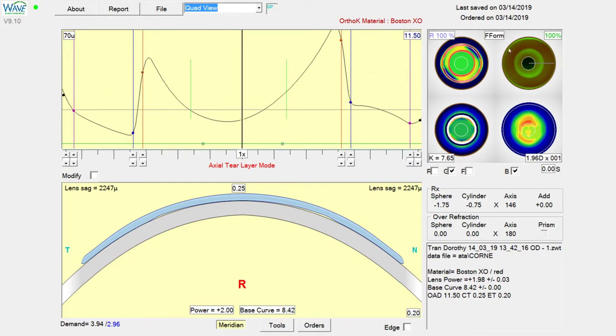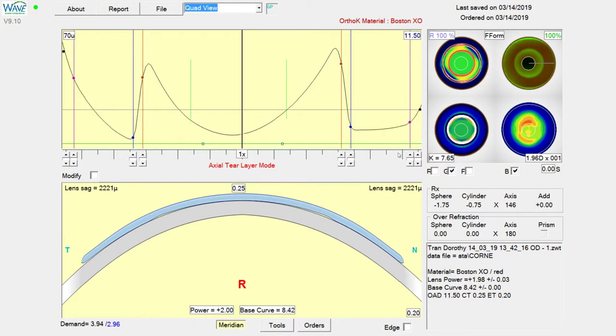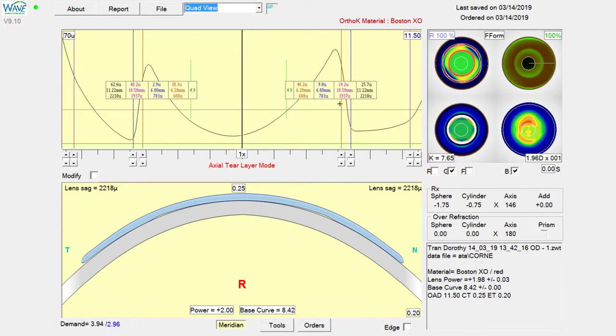We're going to do this all the way around the lens to 100% mode, and we can click that to make each click a little bit of a larger change, which makes everything go a little bit faster. Now we're at 1939, so we'll go one more and we're pretty close to 20 microns more shallow.